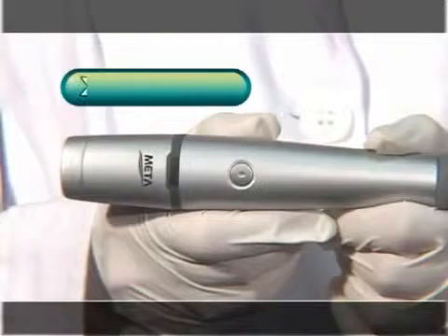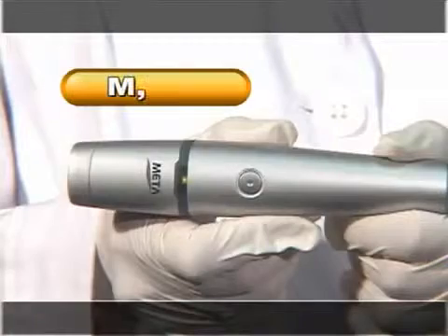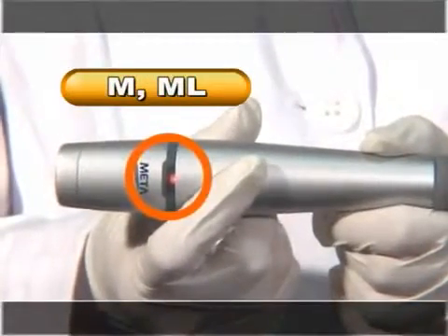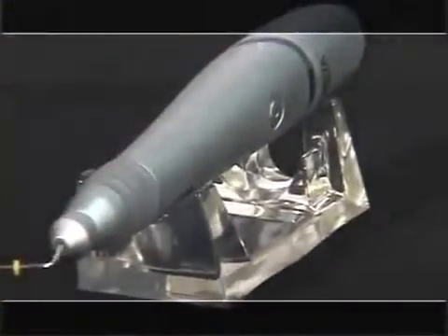Adjust the power switch for small-sized XF and FM pen tips, which turns the pen on and off, into green lamp mode. Big-sized medium and medium-large pen tips use the red lamp setting. After use, turn it off and keep it in the provided stand so that it does not accidentally press the switch.